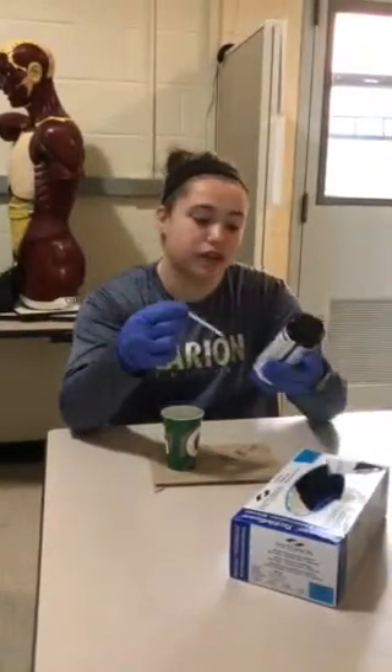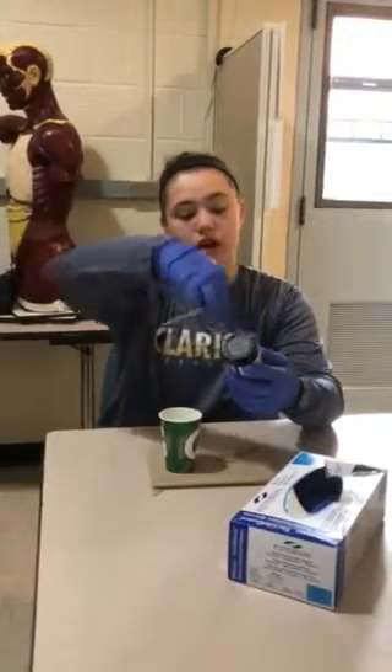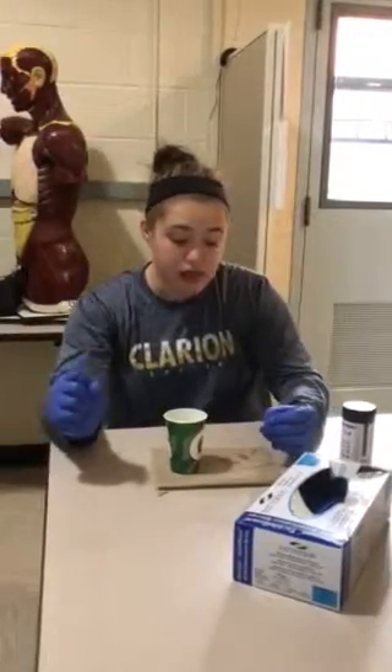So I will be reading protein today. A normal protein reading would be anything under 20 milligrams per deciliter. My protein says that I have normal amounts of protein in my urine. Any abnormal reading would show that there is kidney failure, heart failure, any problems during pregnancy, or possible multiple myeloma.